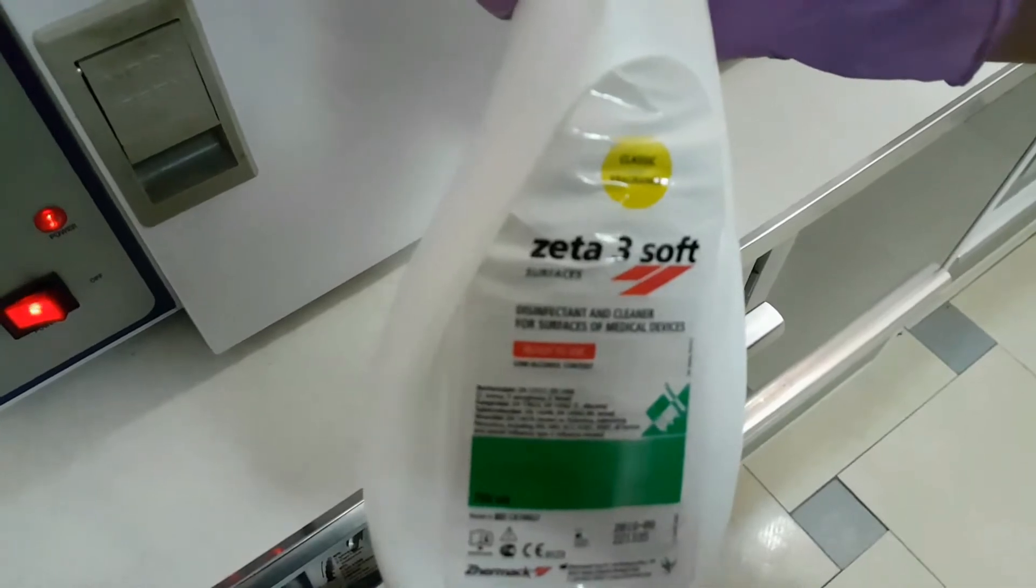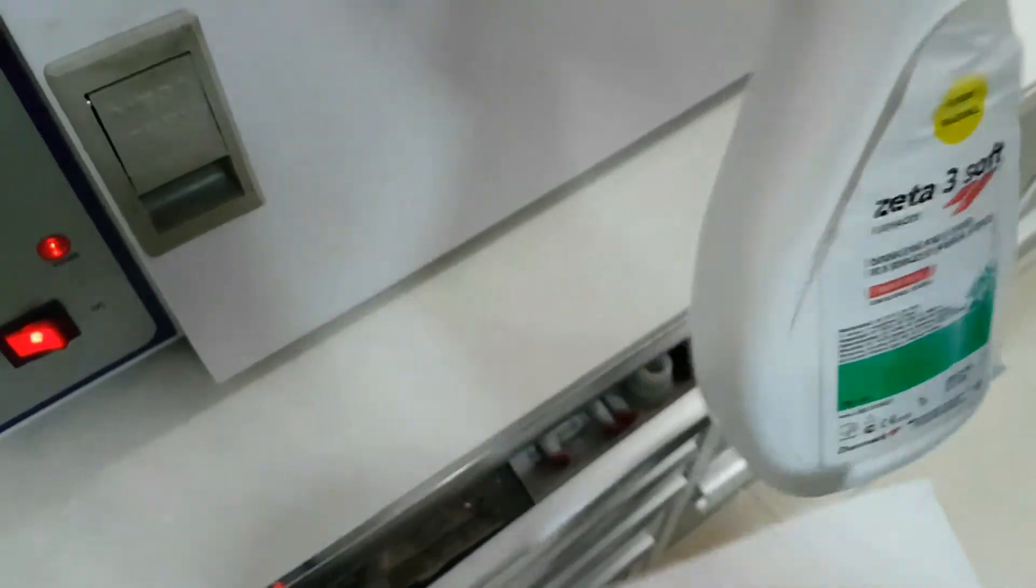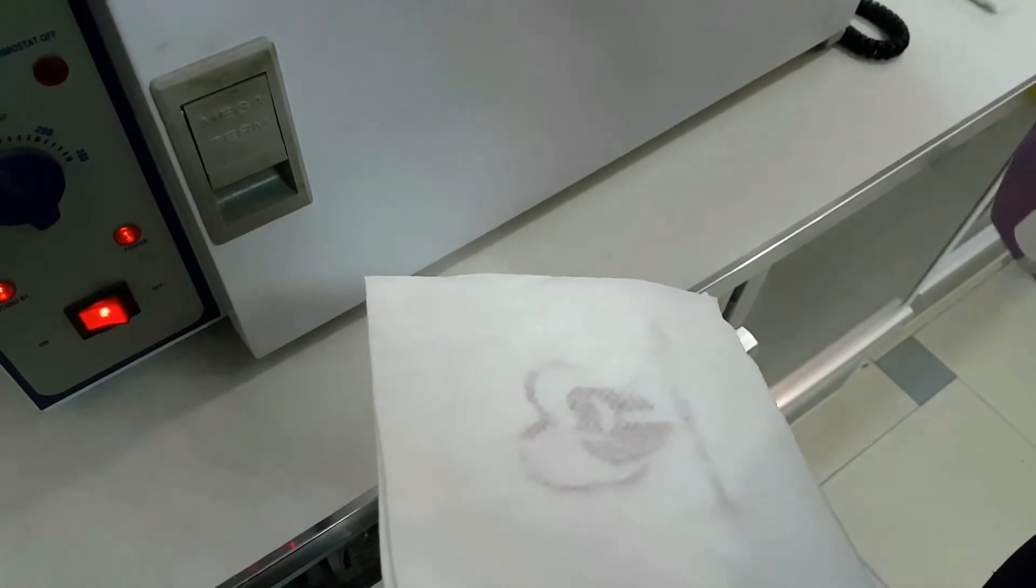And last, we spray on the disinfection spray on the sterilization machine.